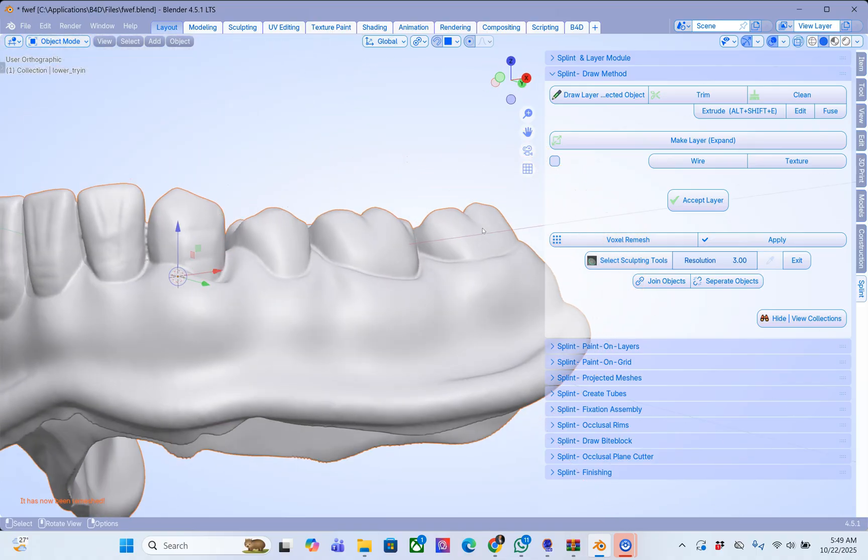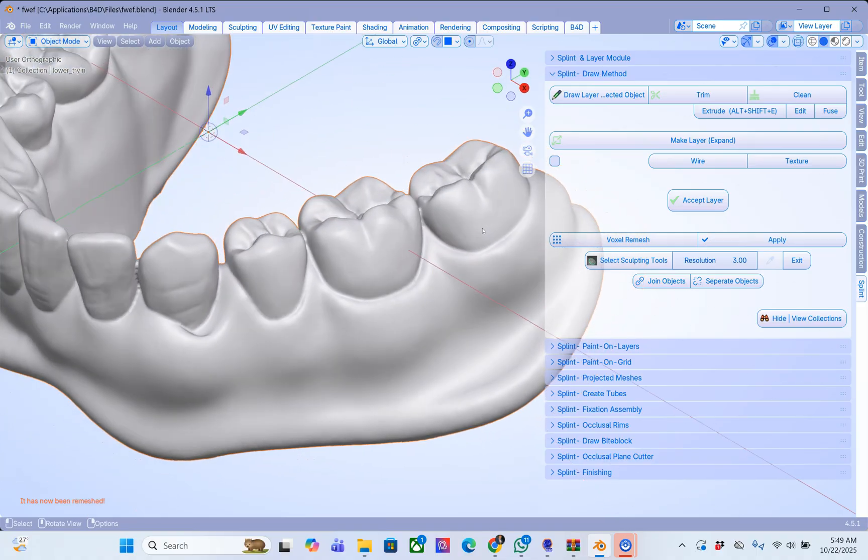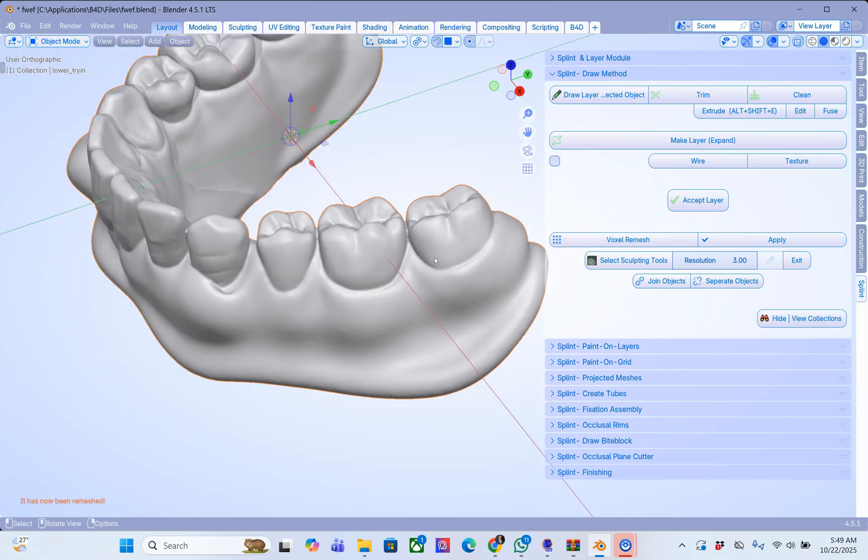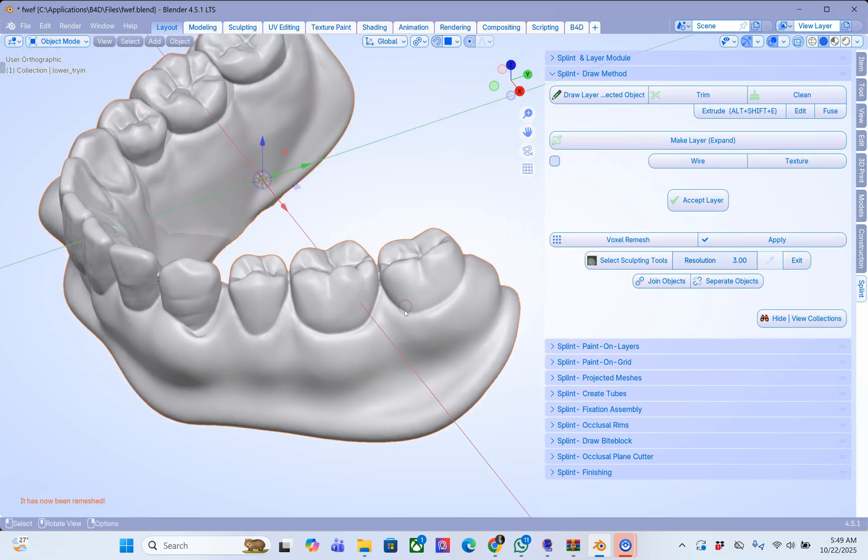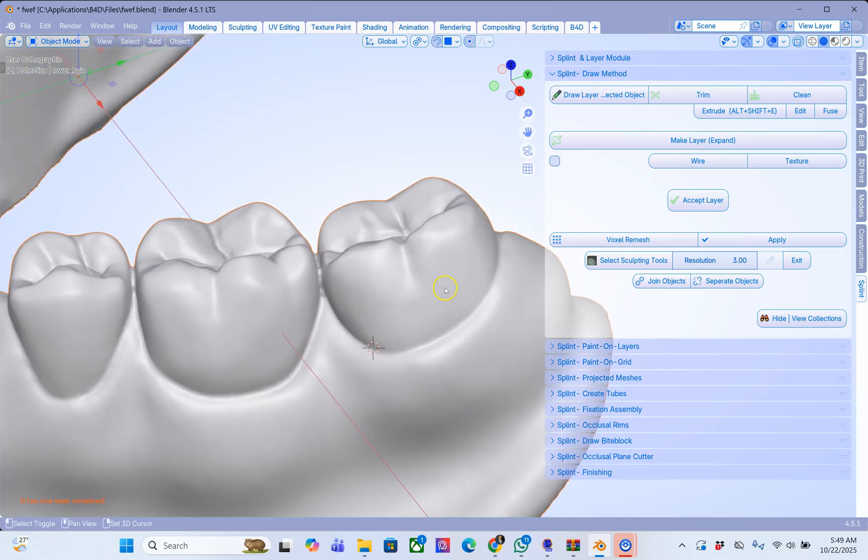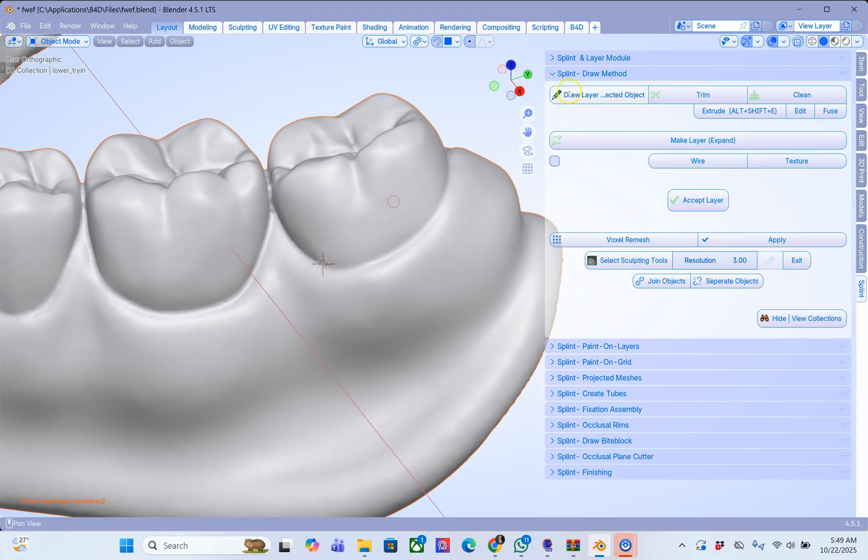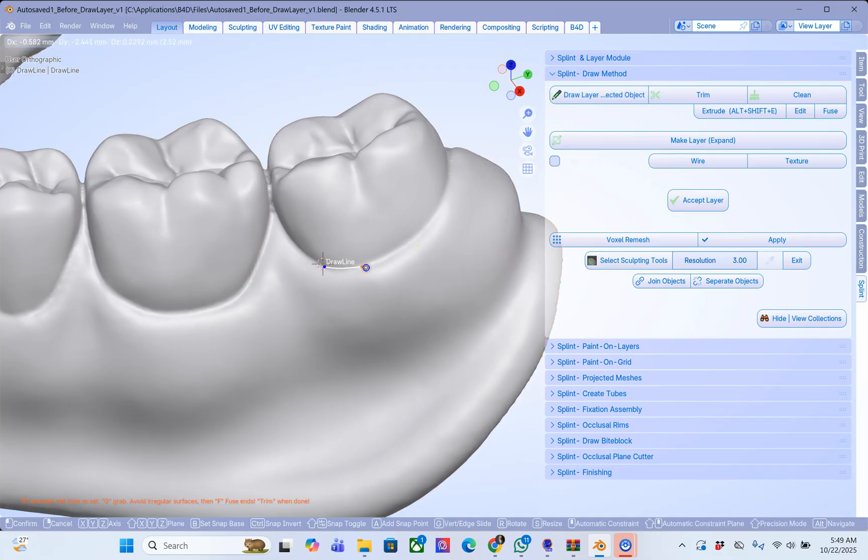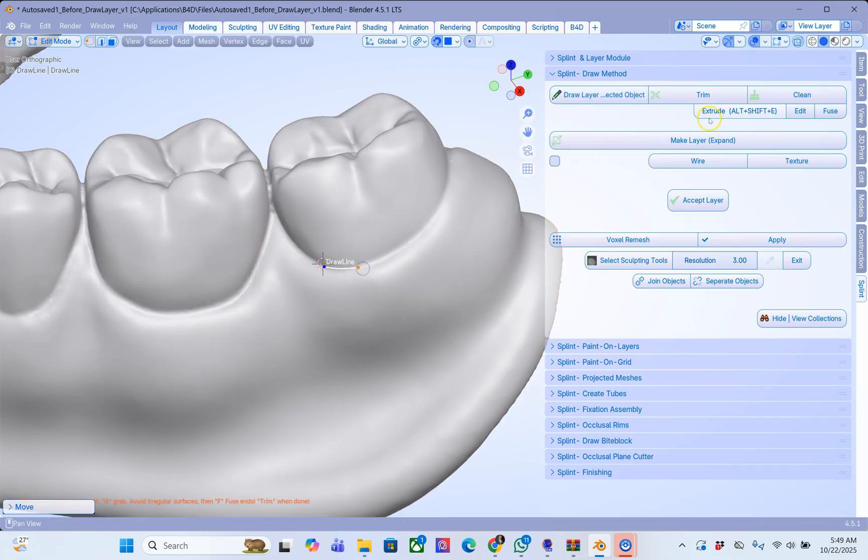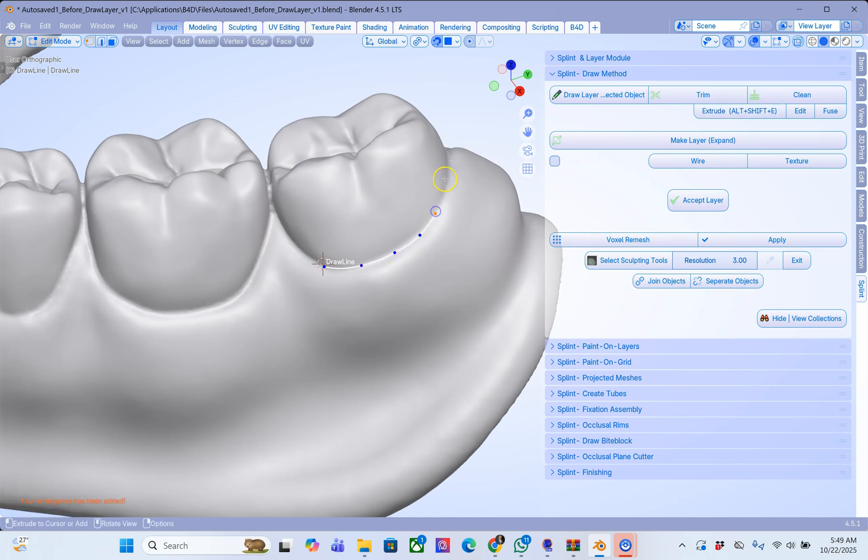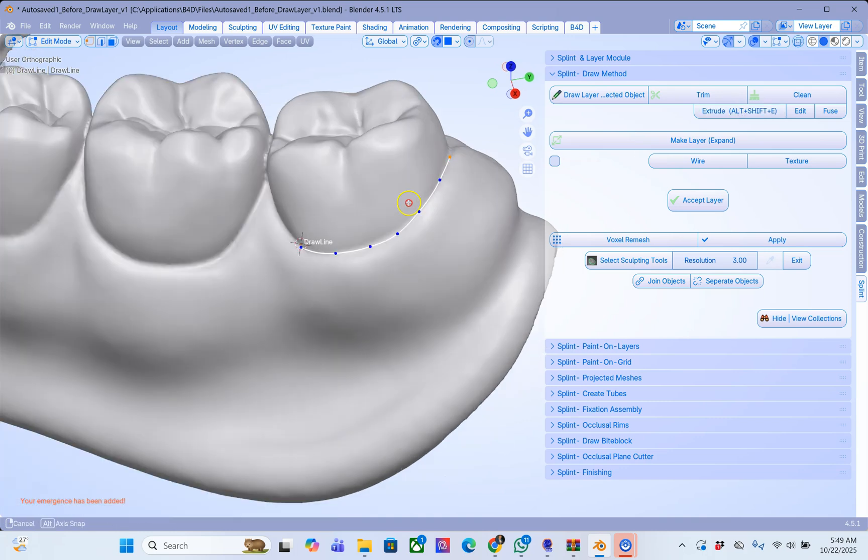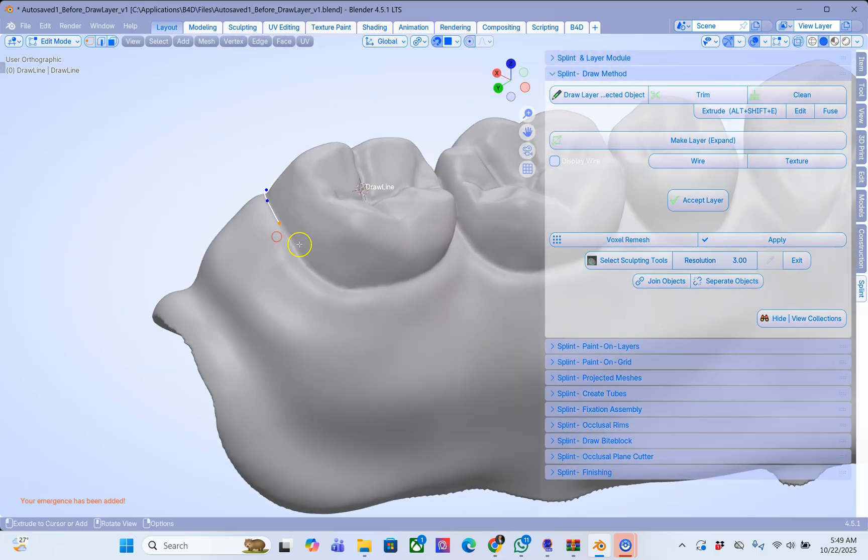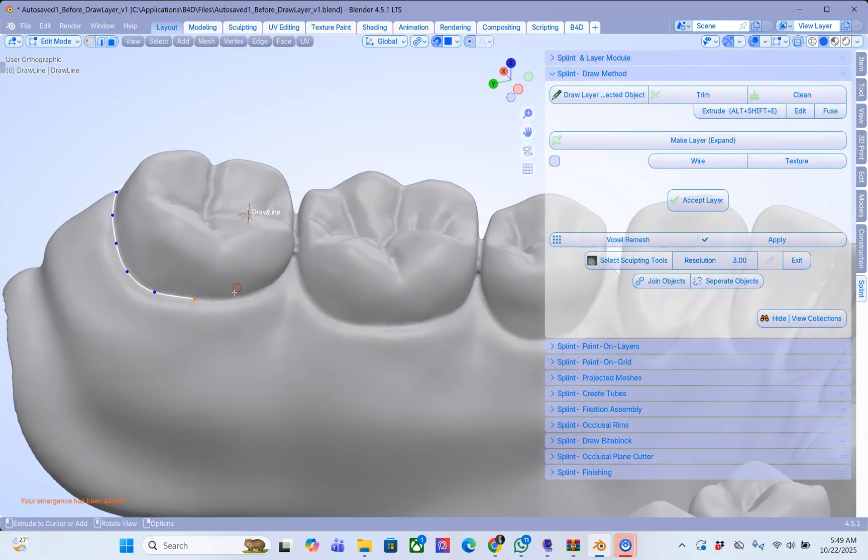Now that we've got a good mesh we're going to draw the layer. Select it. Shift right click to place your cursor. Click draw layer. This is going to give us two vertices, one of which is extended. And I'm going to click on extrude and then left click. Now I'm going to speed up the video just to make sure that I don't keep you too long.